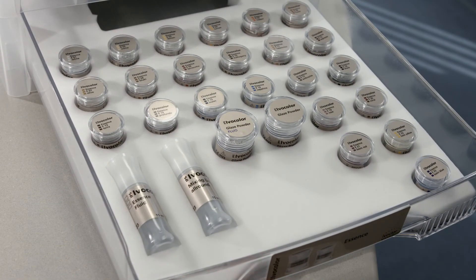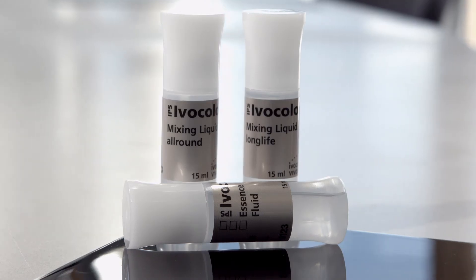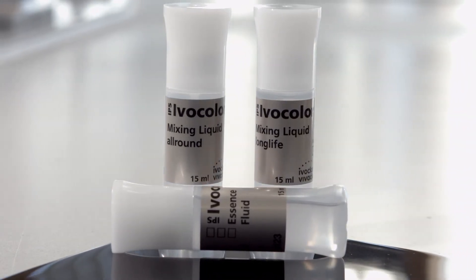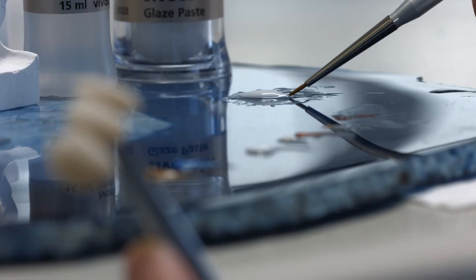Dispense the desired quantity of IPS Ivocolor Essence and mix it with the corresponding IPS Ivocolor mixing liquid depending on the desired consistency. You may also use IPS Ivocolor Essence fluid for this purpose.